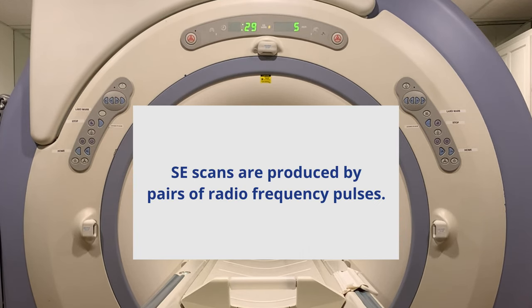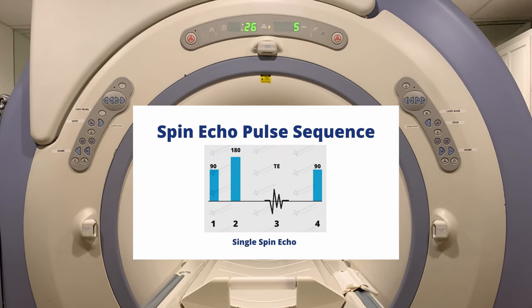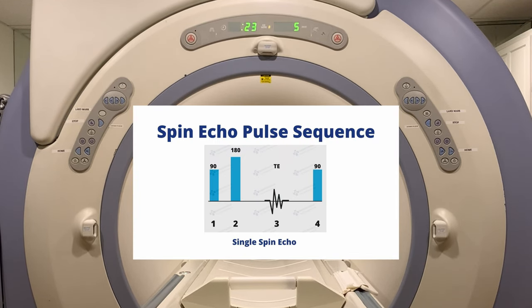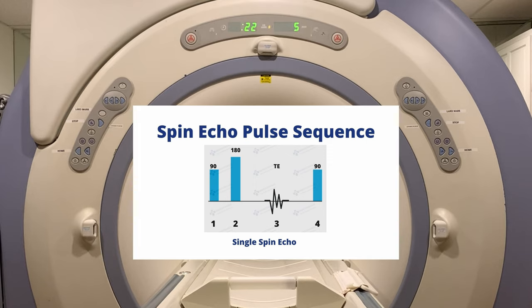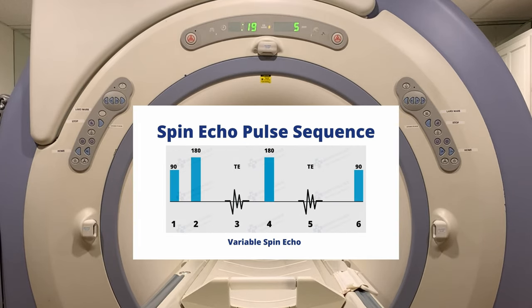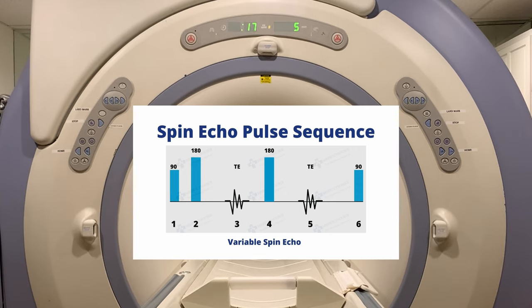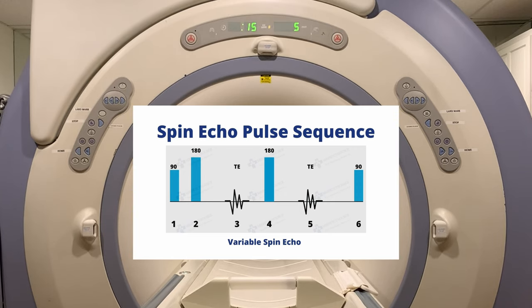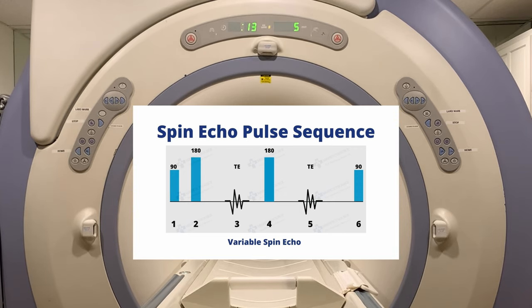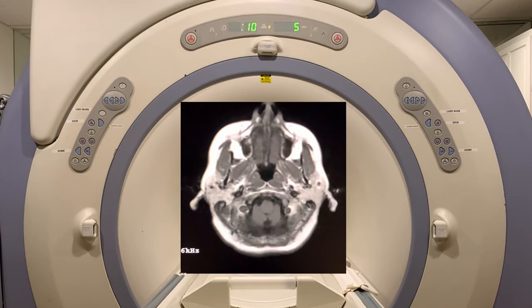The Spin Echo pulse series is a single-plane imaging sequence which consists of a 90-degree excitation pulse with at least one 180-degree refocusing pulse. The 90-degree excitation pulse provides transverse magnetization, while the 180-degree pulse flips the protons to provide spin echo signals.